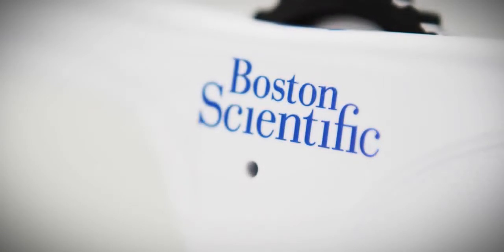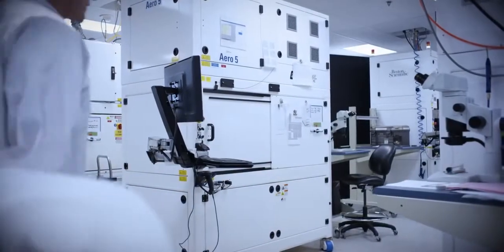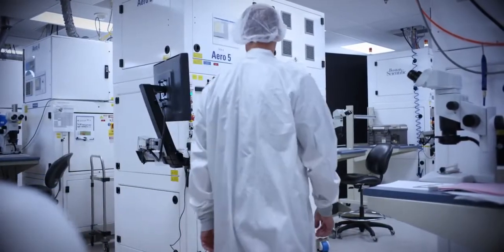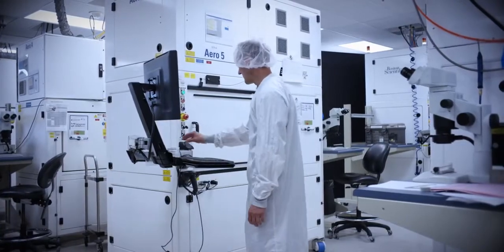To find the design inputs that provided the best outputs, Boston Scientific explored more than 100 stent design iterations, tested numerous geometries and materials. The result is a hybrid architecture stent that delivers on each design and engineering target.